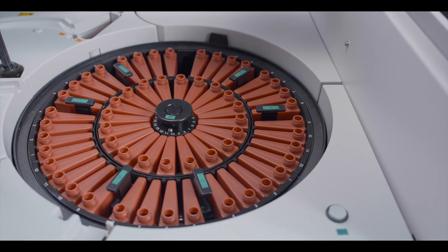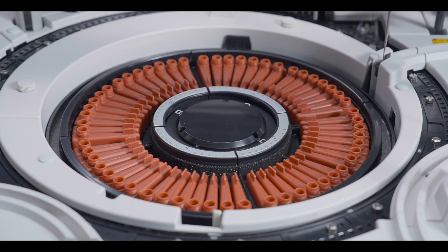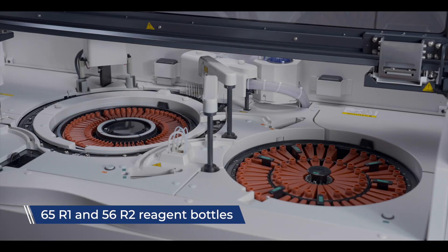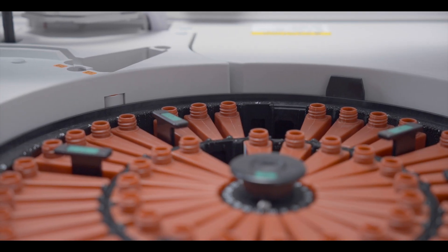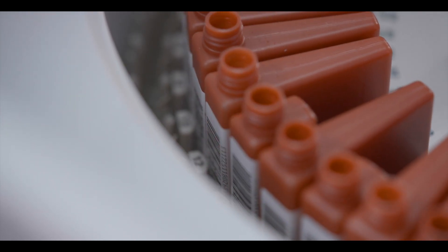The refrigerated reagent compartments, designated as R1 and R2, are operational 24-7 and have the capacity to accommodate 65 and 56 reagent bottles. These compartments are equipped with an integrated barcode scanner and maintained at 2 to 8 degrees Celsius.